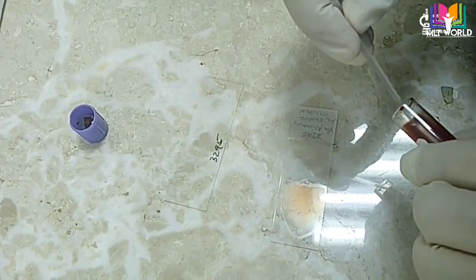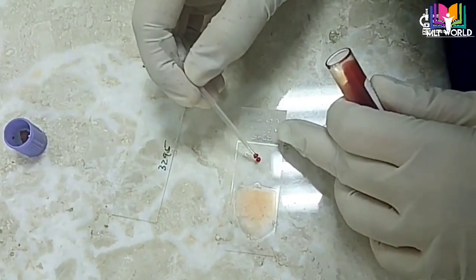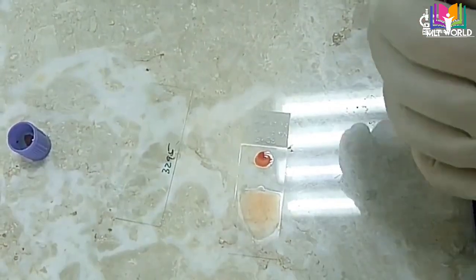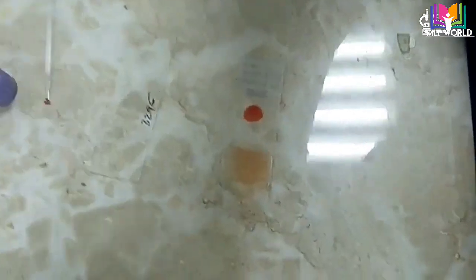You can see this smear is also nice. Whichever method you practice more, you can use it — it's not mandatory to use the first or second method. Both methods are different but the smear will be the same.